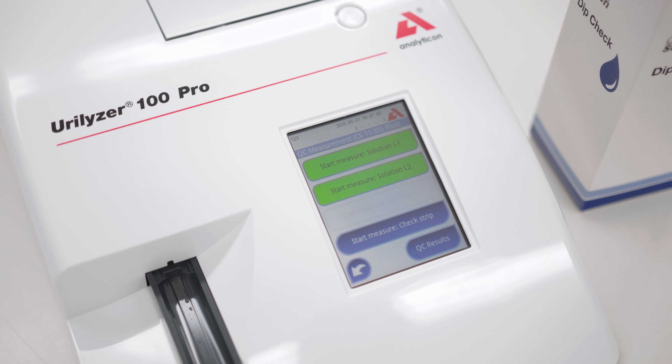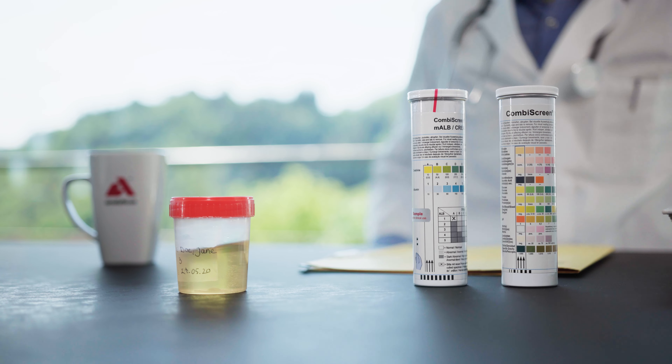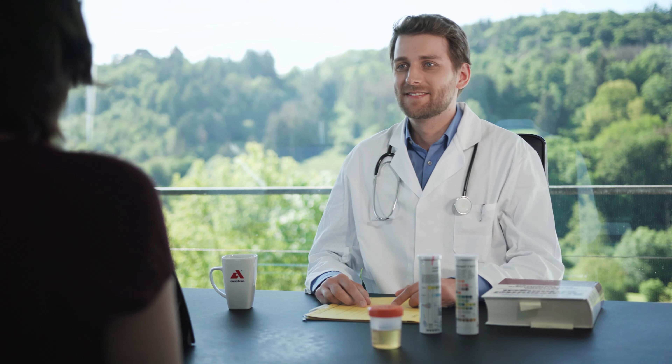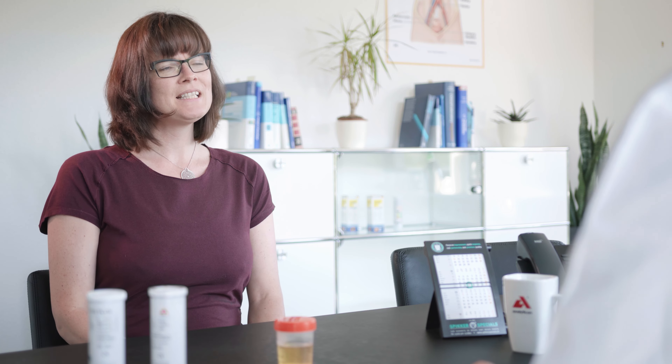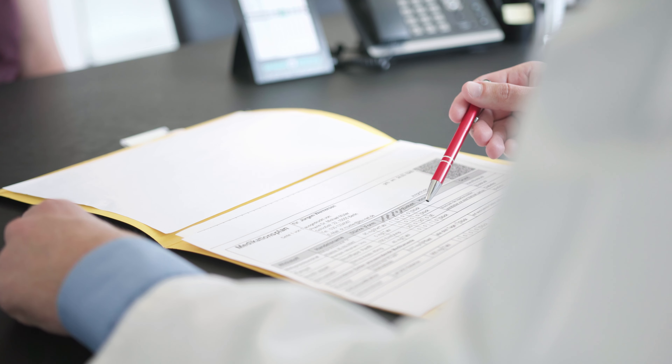The combi-screen urine test strips, including the microalbumin creatinine test strip, allow easy screening for diabetes, urinary tract infections, as well as early detection of kidney diseases.